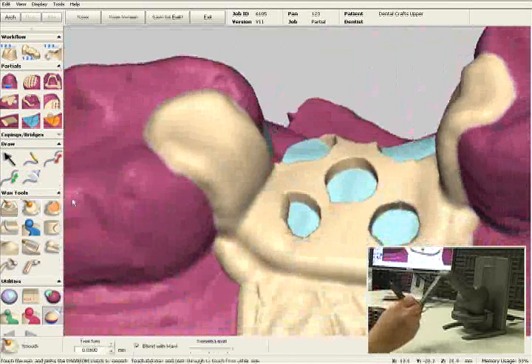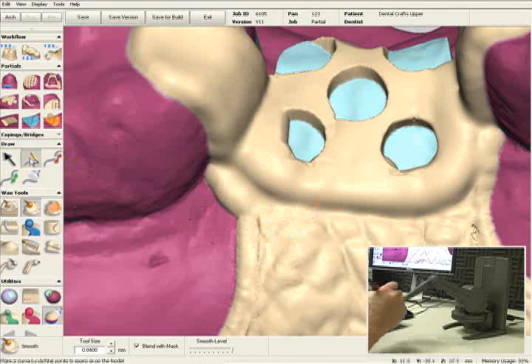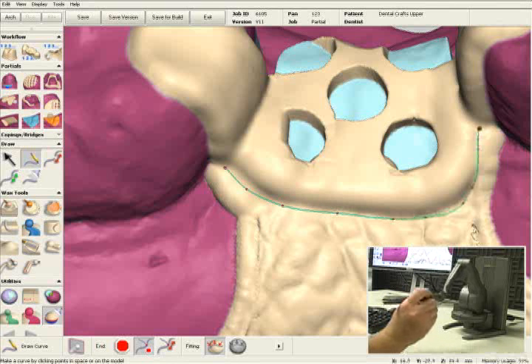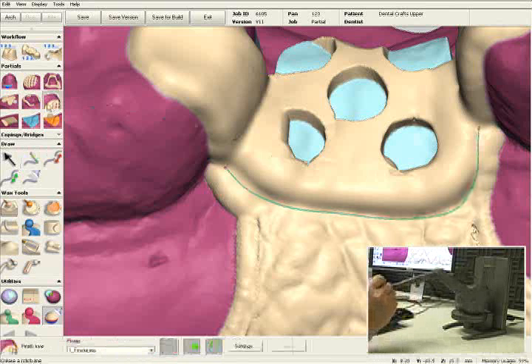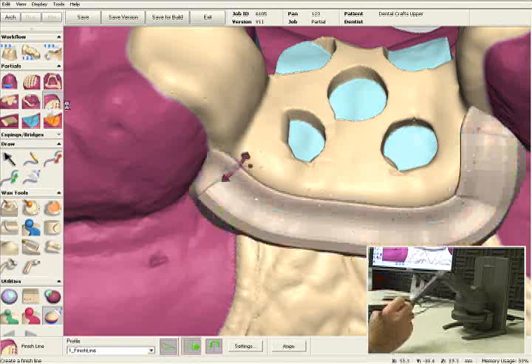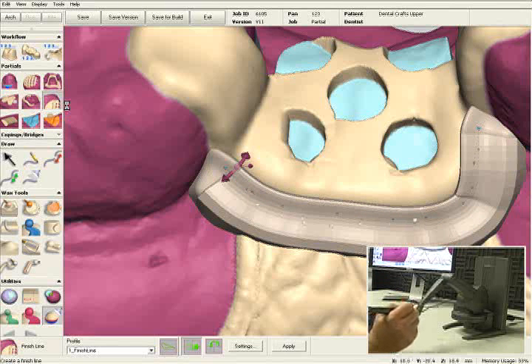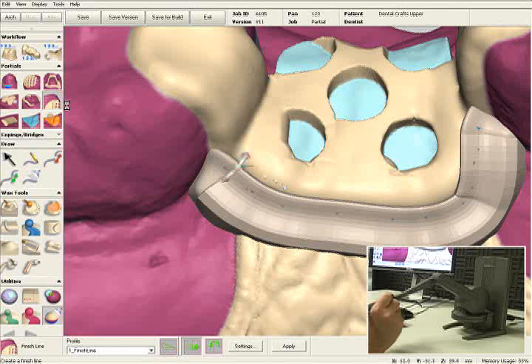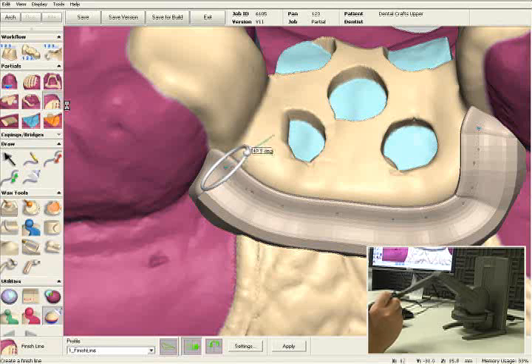Now we're ready to add the finish line. I'm going to select the pencil tool again and draw where I want my finish line to be. I'll select the finish line tool and click on the line I just drew — now we have a three-dimensional preview of the finish line. On the left there's a purple arrow with a two-sided arrow pointing buccal and lingual. If I grab the center point of that arrow, it turns white, and as I move it back and forth buccal-lingual, you can see the degree numbers are changing — so I can actually change the angle of my finish line.